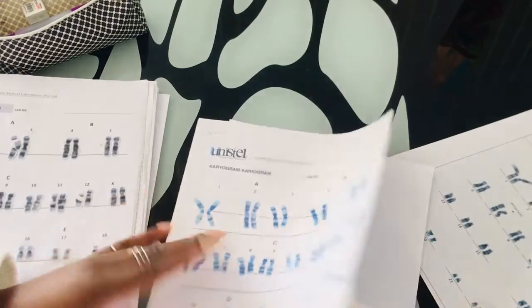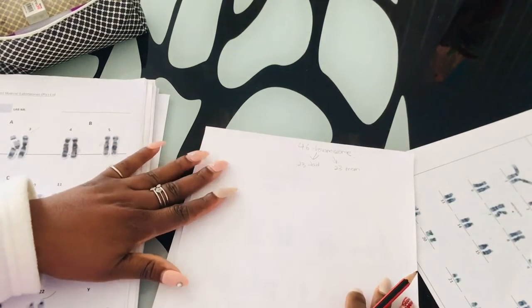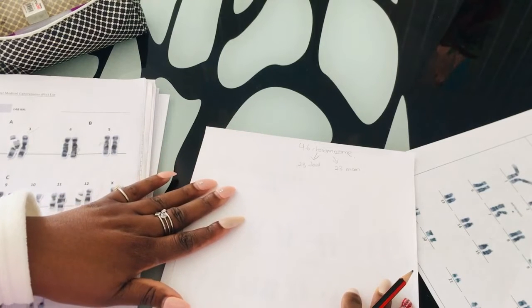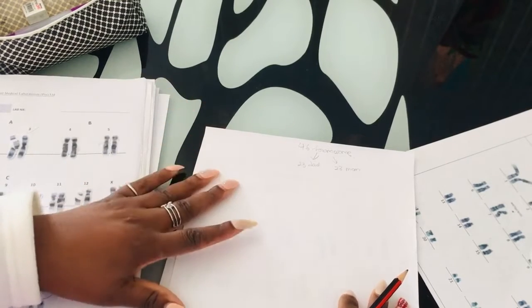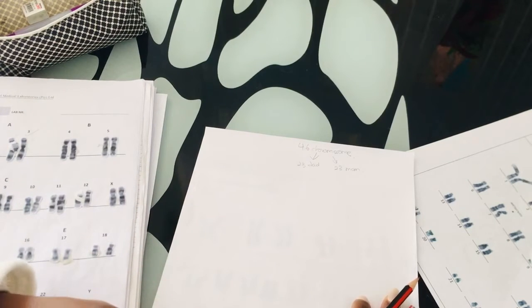In this video I will simply explain how you can recognize your 46 chromosomes, how you can identify them and get to know them individually, so you can be successful in your karyotyping.